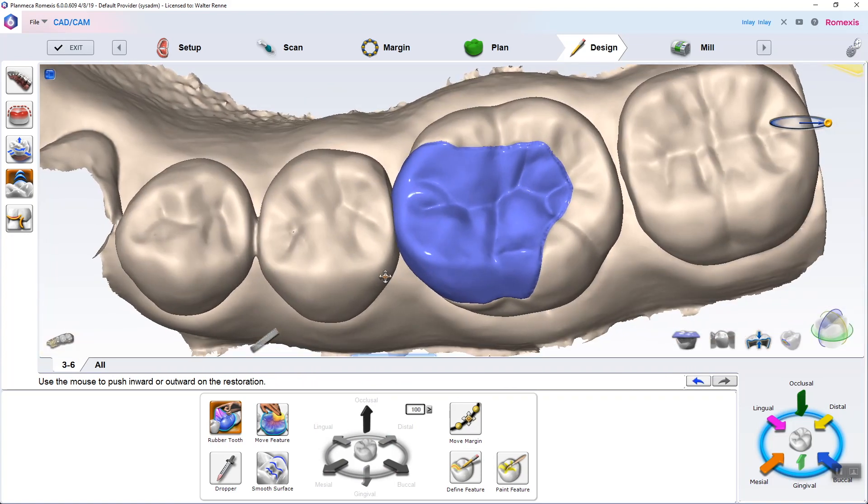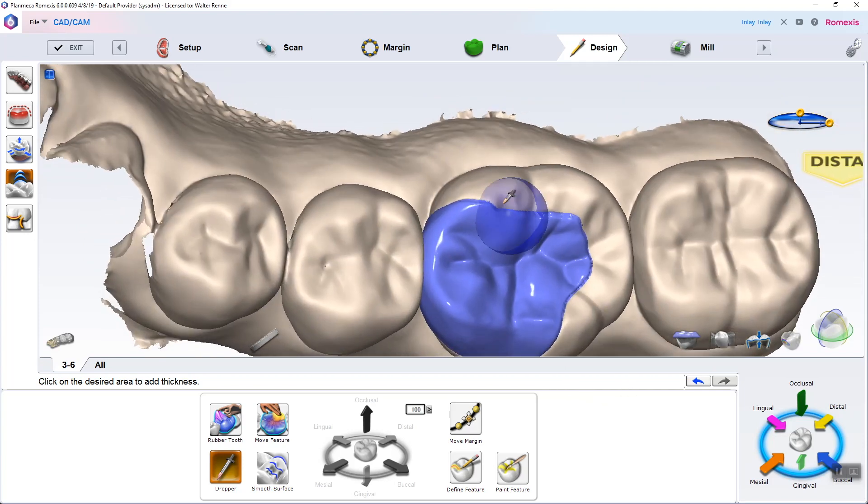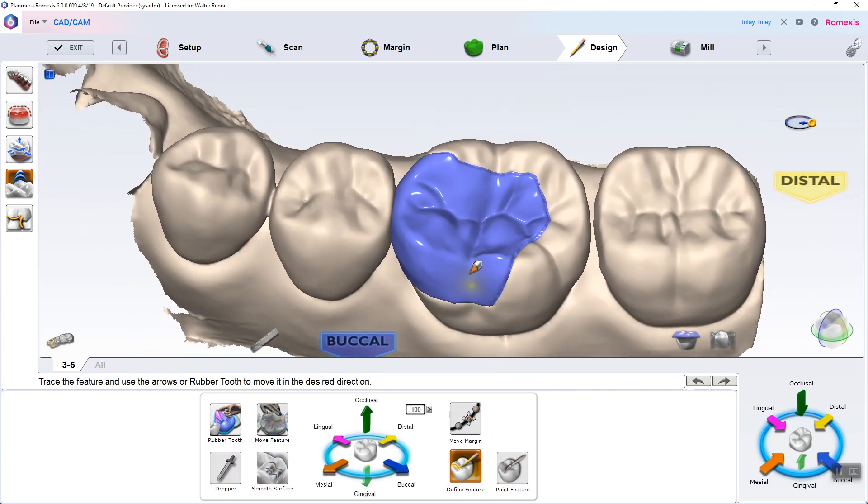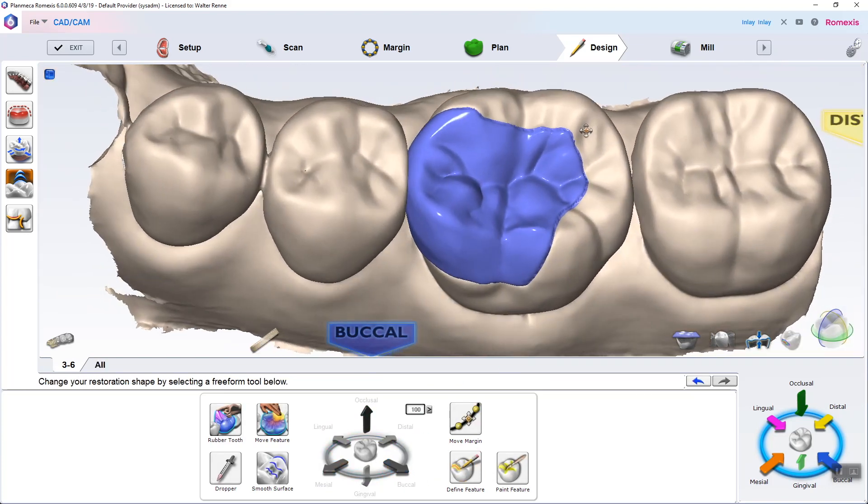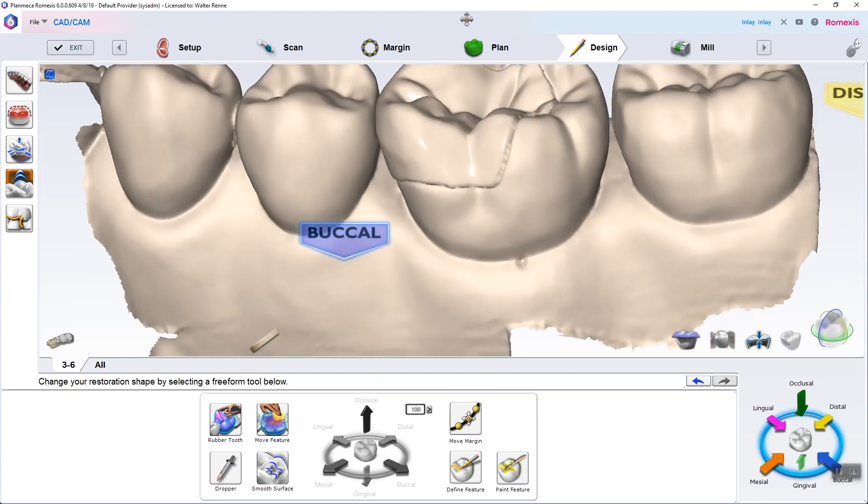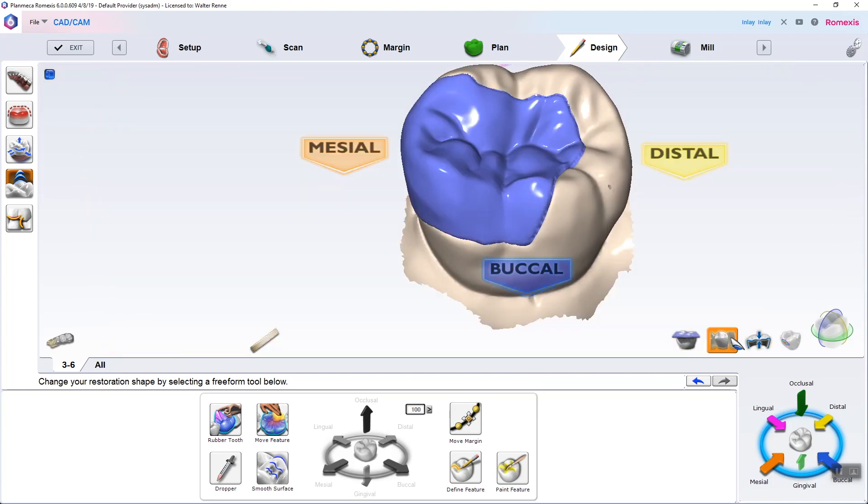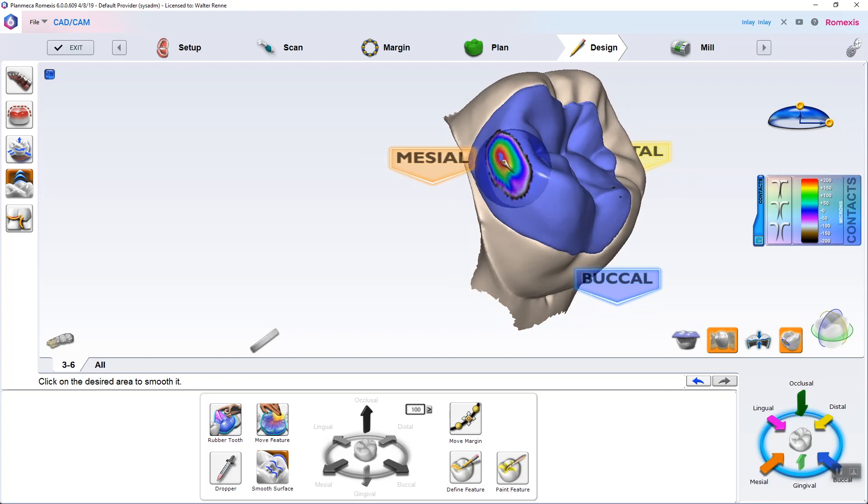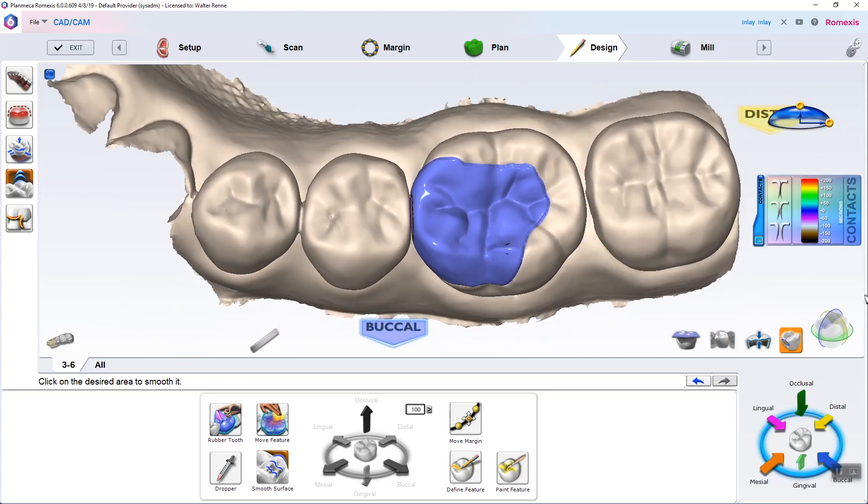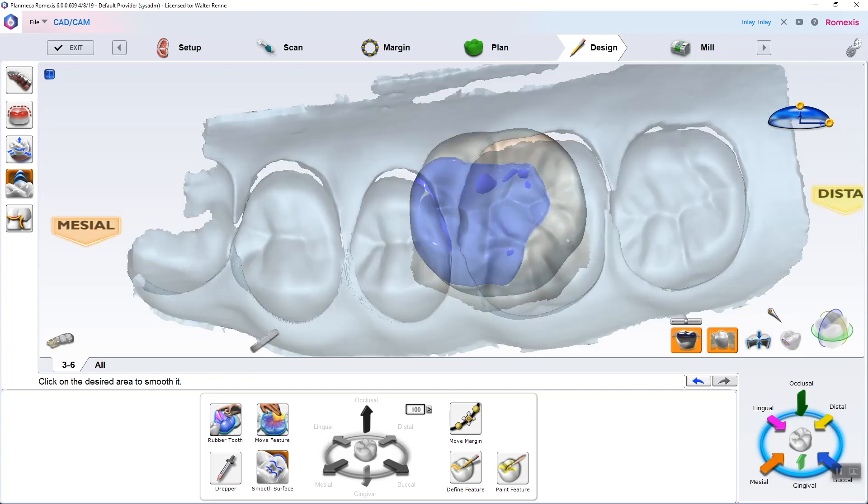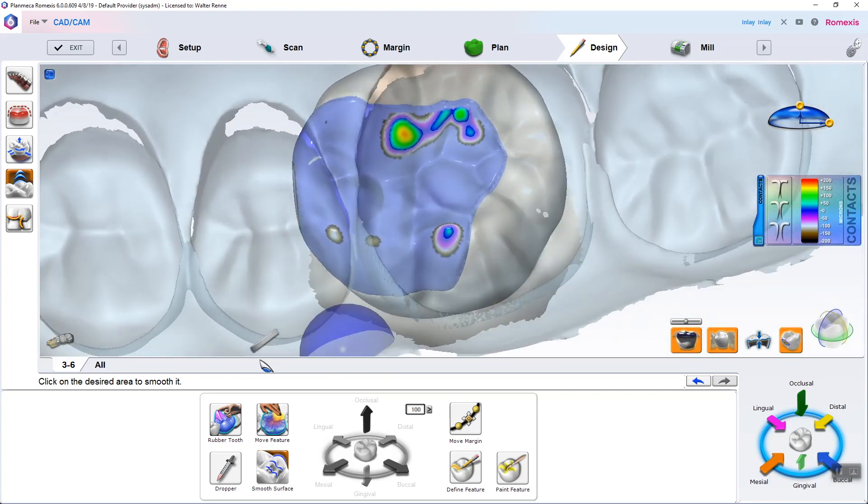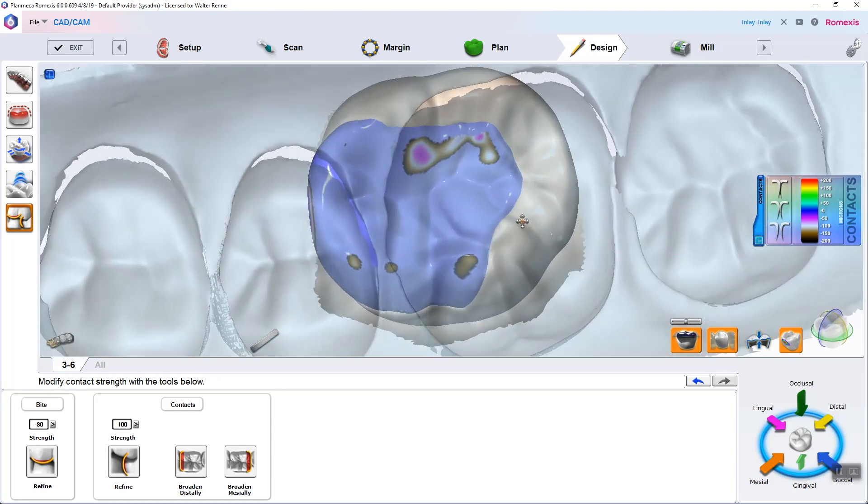Marginal ridges are the first thing that I mess with—bead of ceramic using the dropper to boost those margin thicknesses. And that's about it, maybe a little crazy anatomy here just to make it look hot. It's looking super nice. Check that proximal contact. You want it to be that teal green, Hawaii oasis green look. And then trimming it.